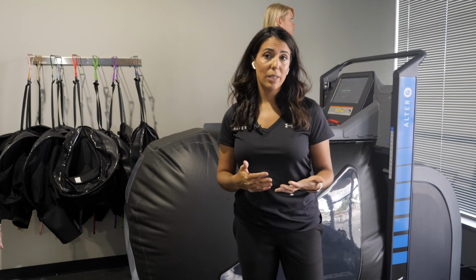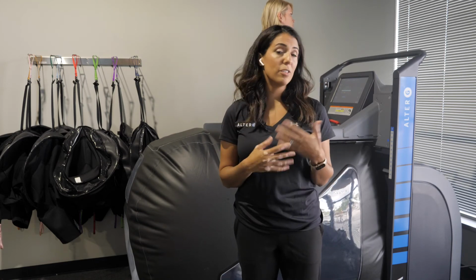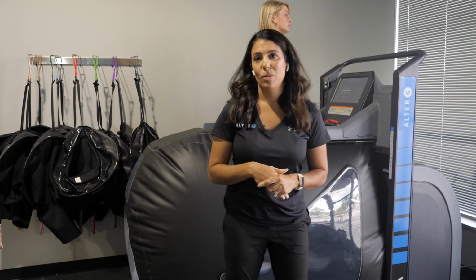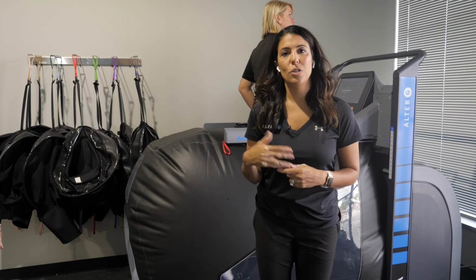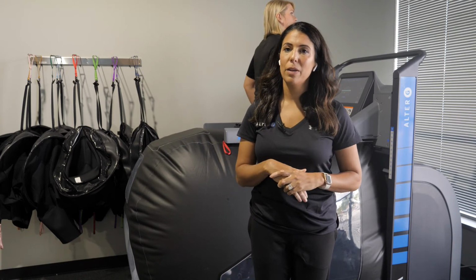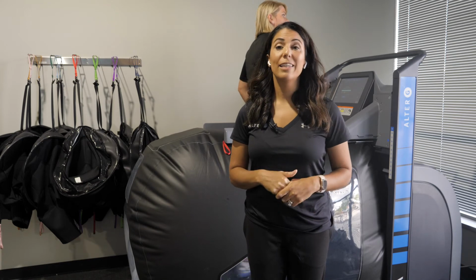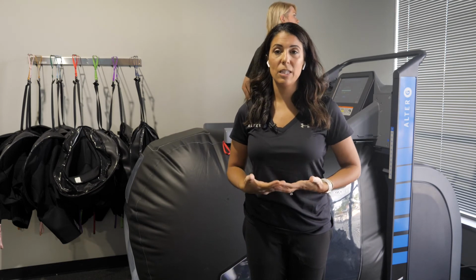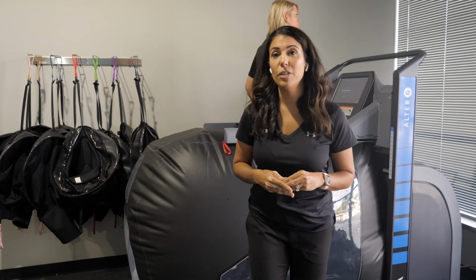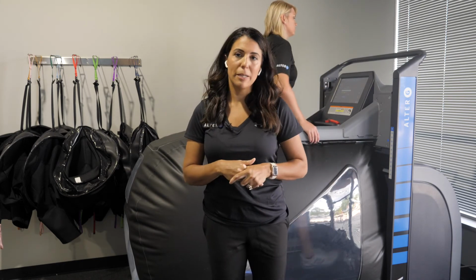So that'll allow you, again, to be able to tell a physician or report back and say, Katie's pain shoots up to a 6 when she walks at 80% body weight, but at 70% body weight, her pain was down to a 4. Again, it's going to justify why they still need that body weight support to be able to have pain-free mobility. So really great feature, again, for that justification of treatment.